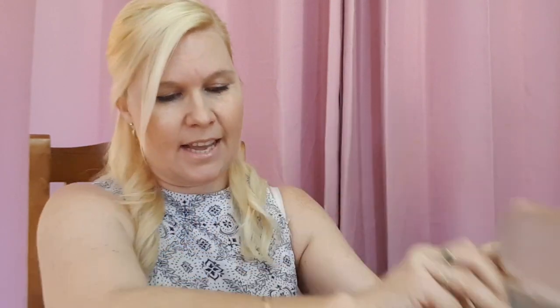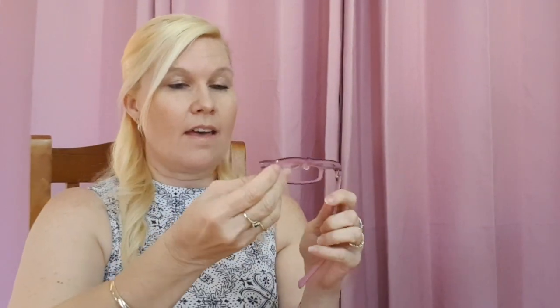Let's have a look at the glasses. I got a similar shape frame to my glasses — the ones I already have are more of a square base and this is a little bit round, so I'm kind of excited about that because I've never tried anything like that. They open up really nicely, feel strong and easy to move, and the glasses themselves do not feel cheap at all.